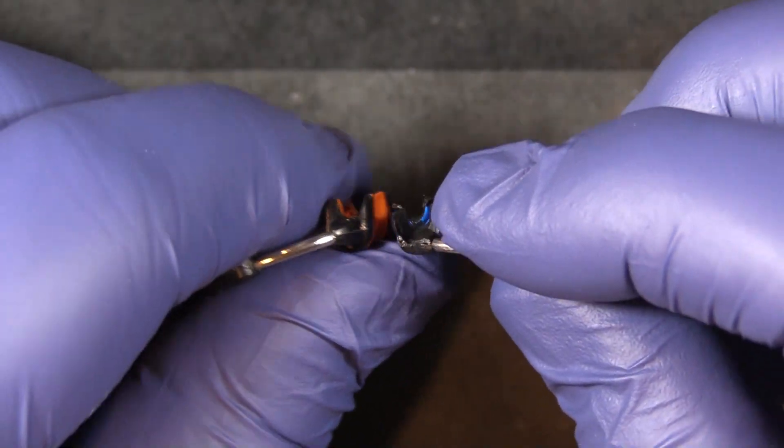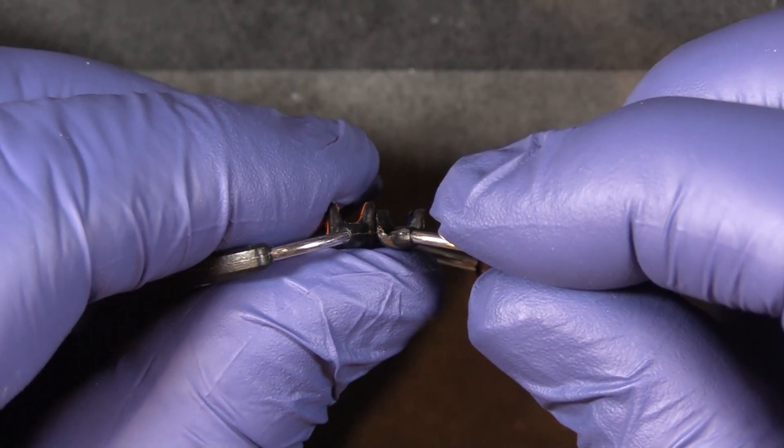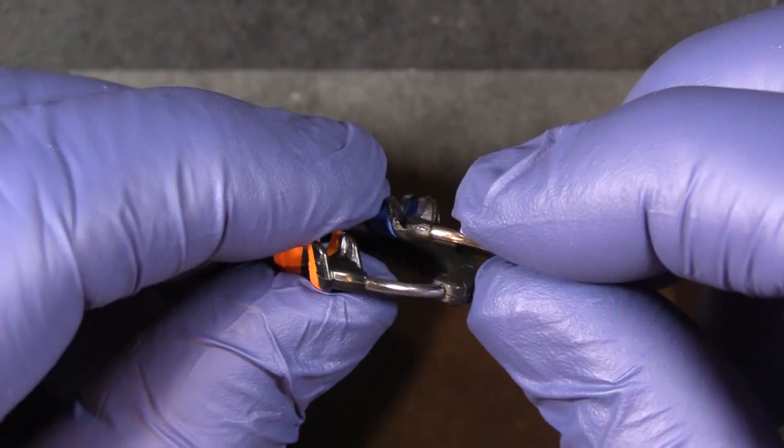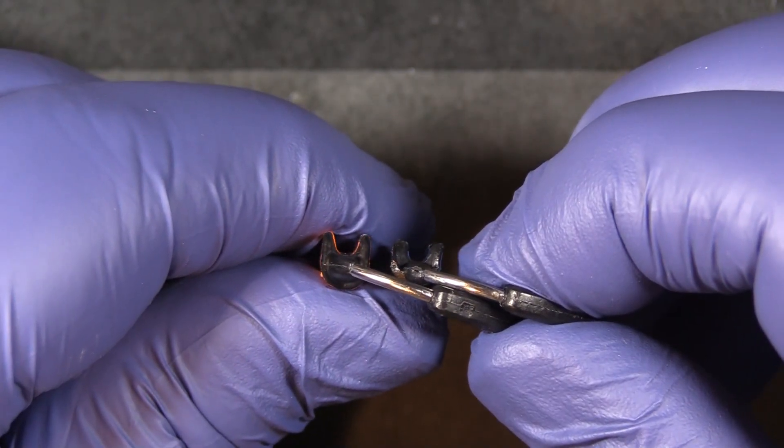The blue one is a short ring. You can see the difference in the gingival-occlusal height of the ring. They can be used together for stacking, with the short ring and then the taller orange ring stacked over top.